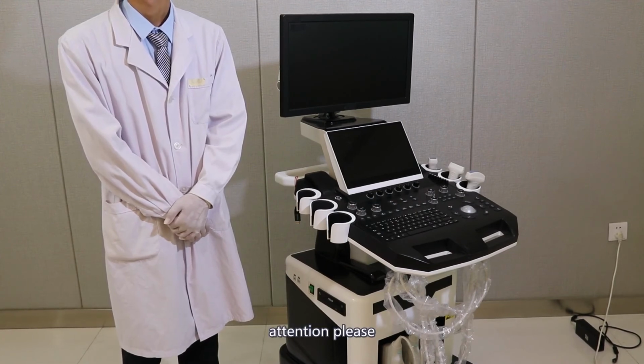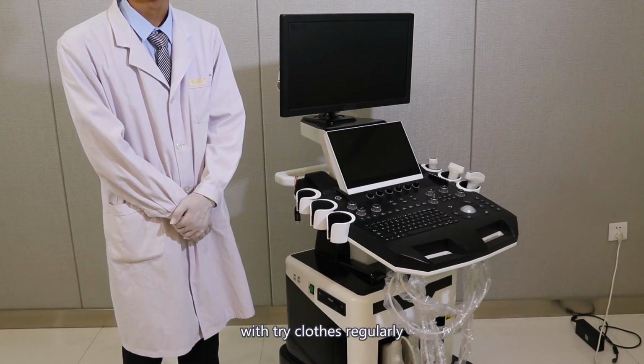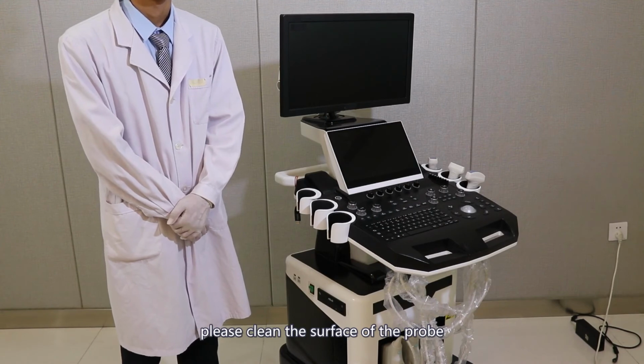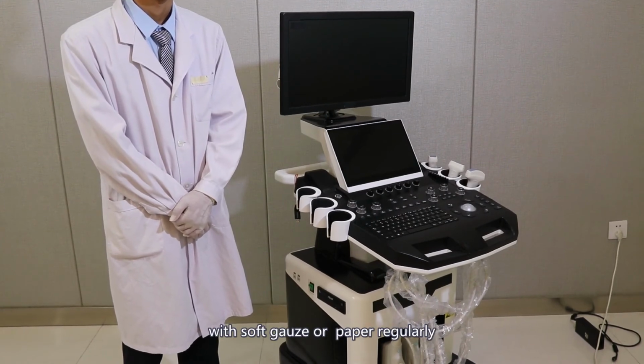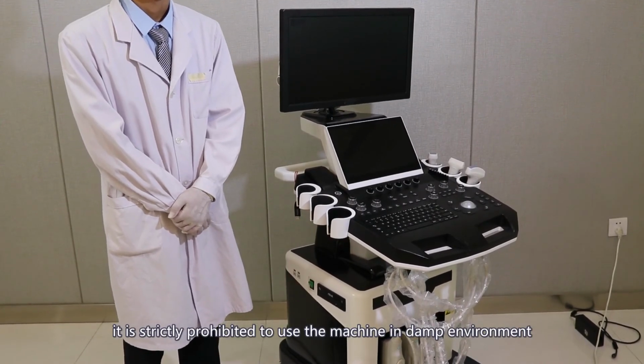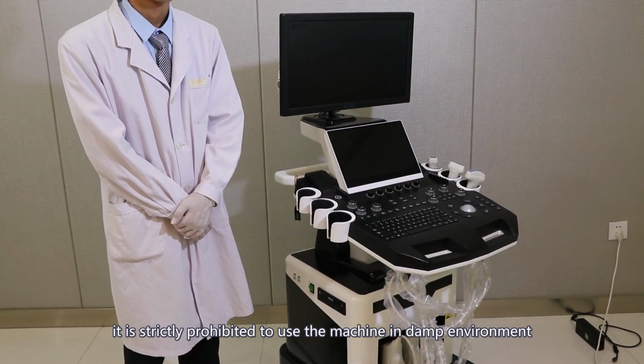Attention! Please clean the surface of the machine with a dry cloth regularly. Please clean the surface of the probe with soft gauze or paper regularly. It is strictly prohibited to use the machine in a damp environment.